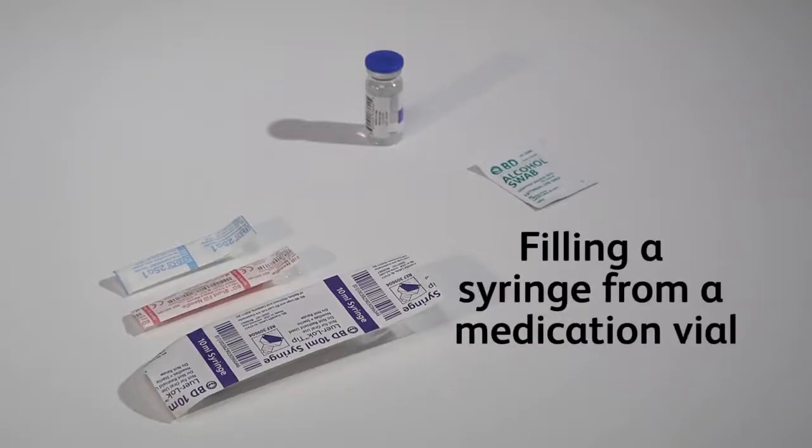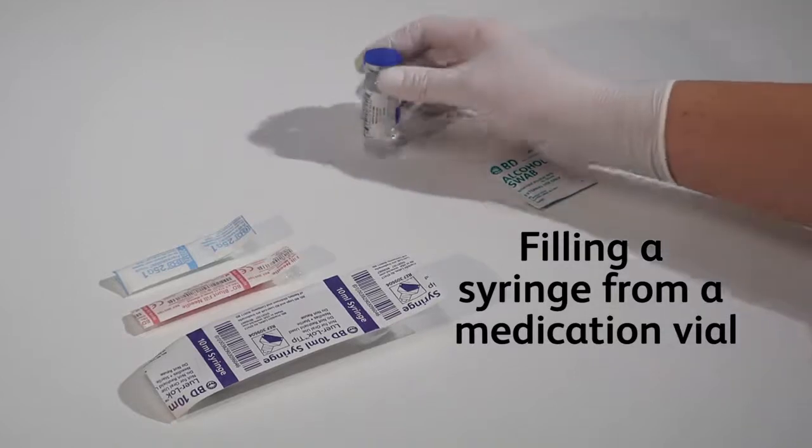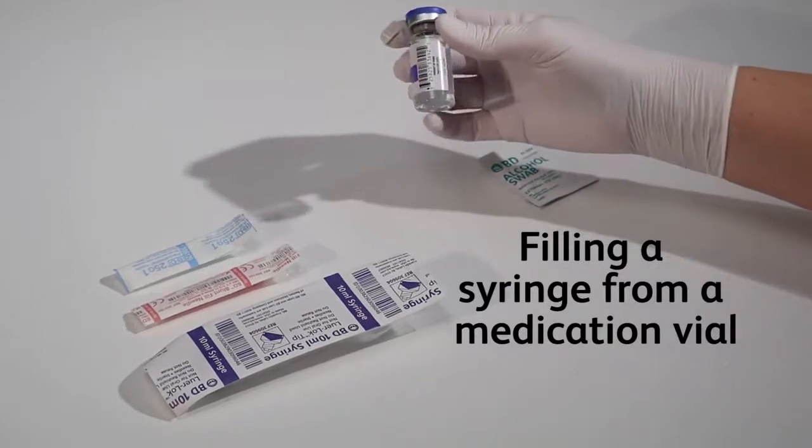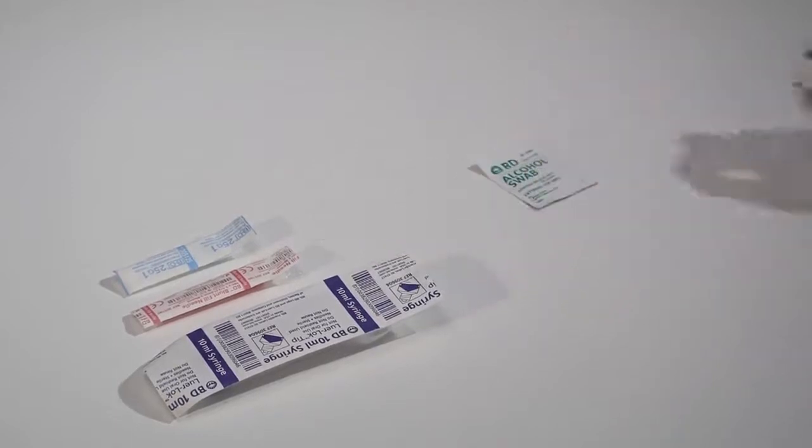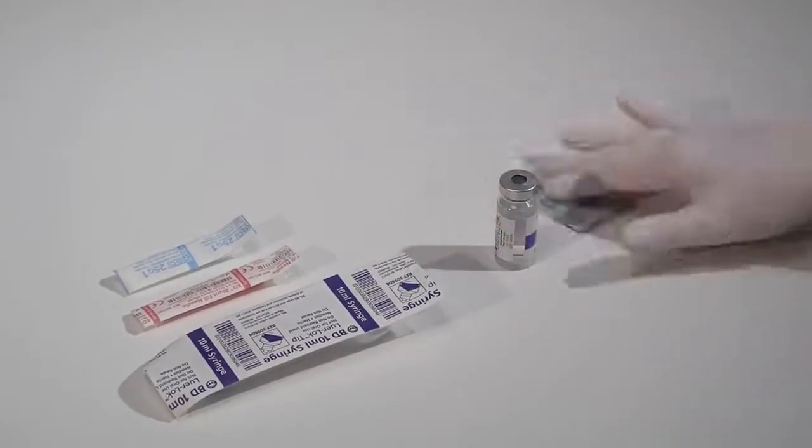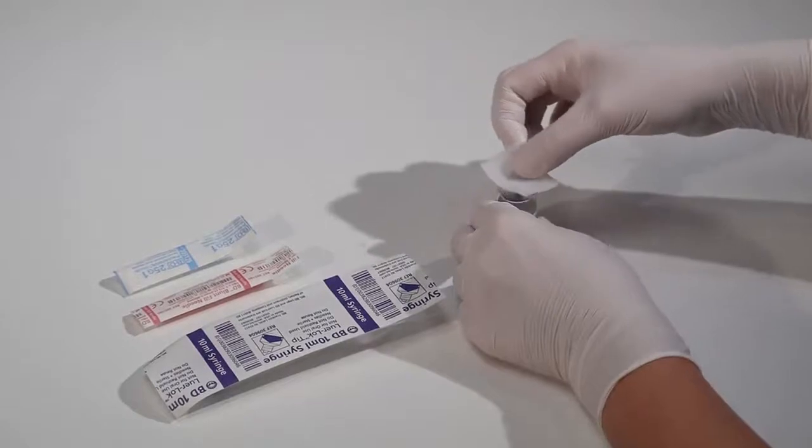After you've assembled the equipment, performed proper hand hygiene, and donned gloves, read the label on the medication vial to confirm correct contents and concentration. Remove the vial cap, then clean the stopper with an alcohol swab.